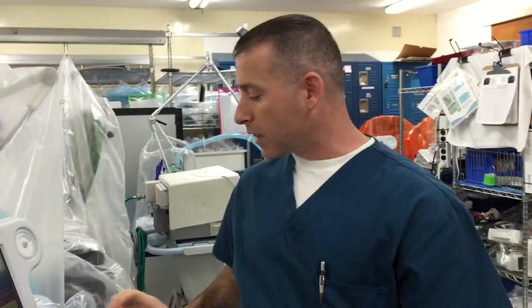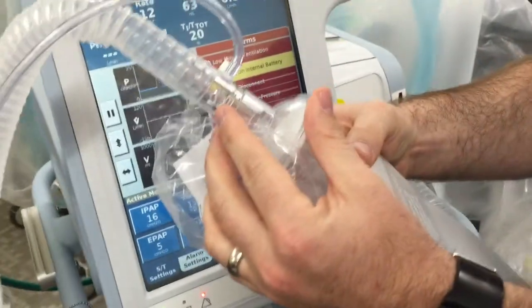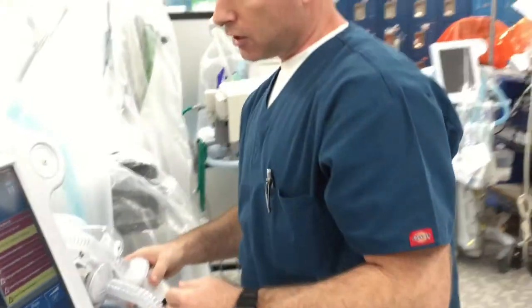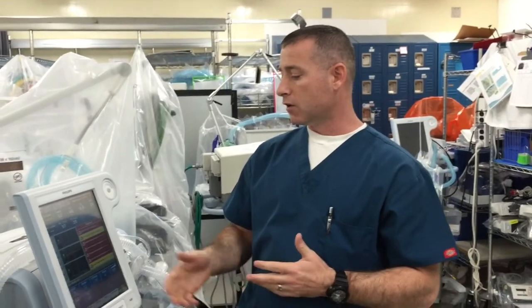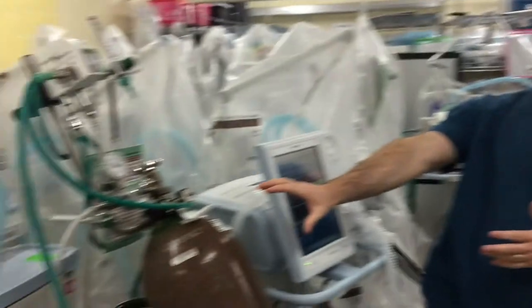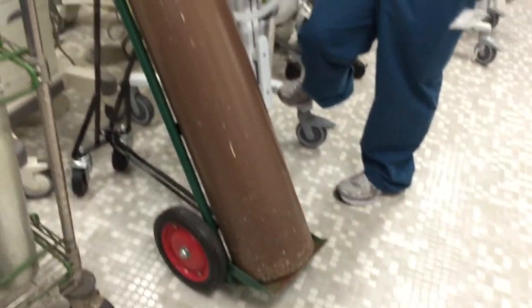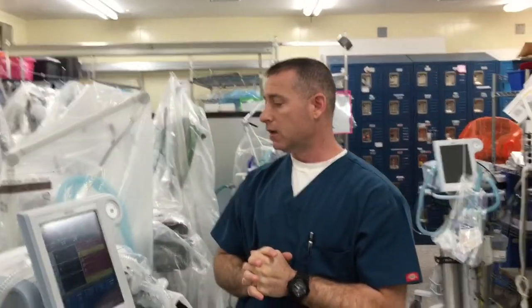What you are delivering to the patient is heliox therapy for increased airway resistance plus added pressure to decrease the respiratory work of breathing. One last point: because BiPAP has a constant leak, that constant or excessive leak will cause your tank to deplete very quickly. Rough estimates vary with respiratory rate and volumes, but if your patient is breathing in the 30s with good tidal volumes, each tank could last about an hour. Make sure you have a backup tank available and some help setting that up. That concludes our talk today.